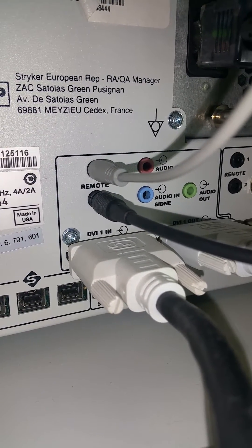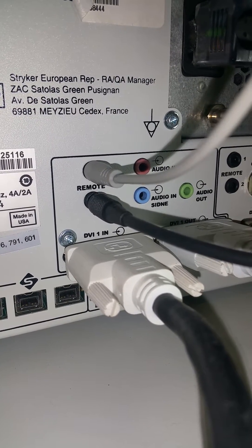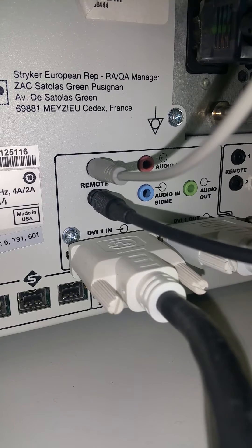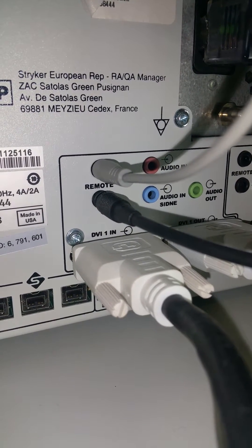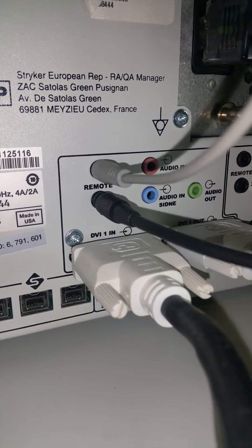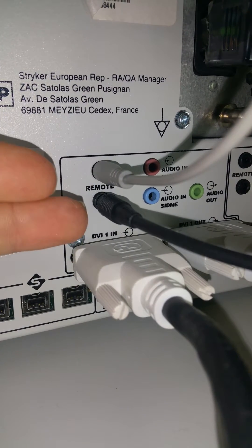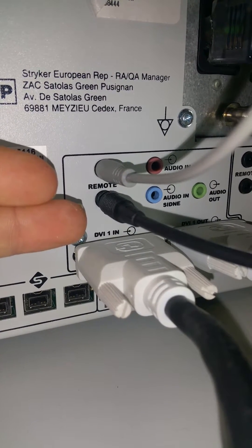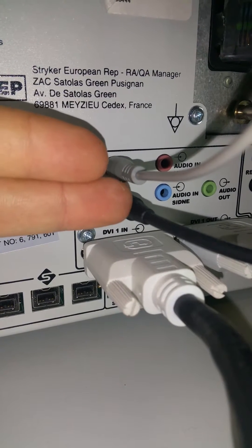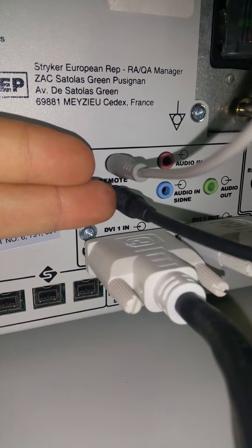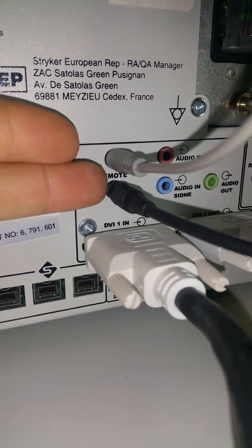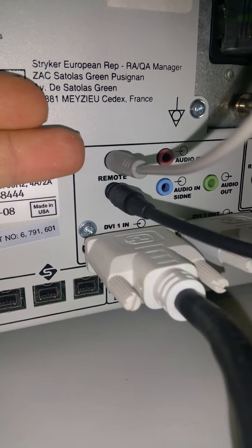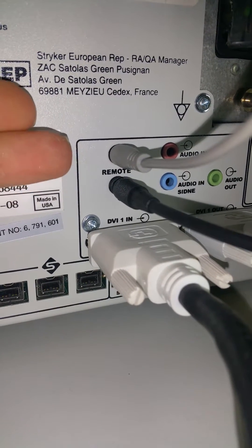The remote one being taking photos via the camera head, the button on the camera head. So you press the photo button once and it will take a photo. And that is because of these particular cables that are plugged in. Now, so the first one being photo, second one being video. If for whatever reason on the camera head, you went to take a photo, so you press the photo button once and instead of taking a photo, it starts taking video.